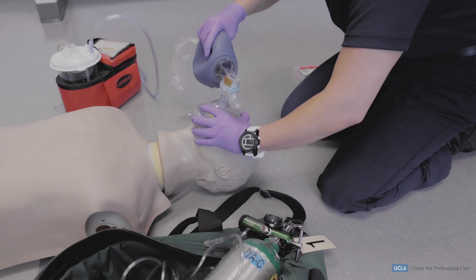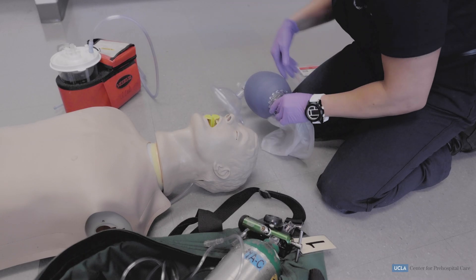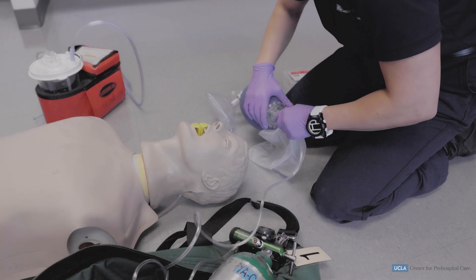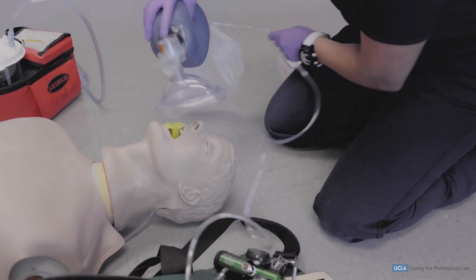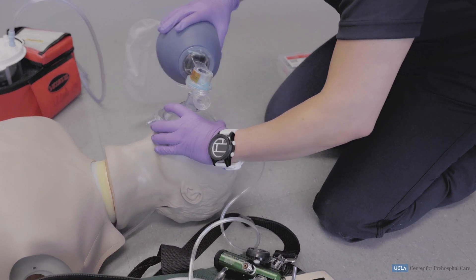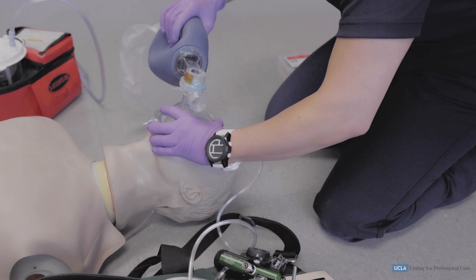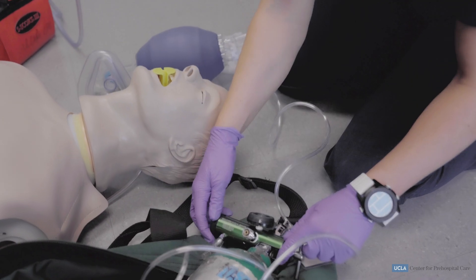She attaches the pre-assembled oxygen cylinder with the regulator. Attach the oxygen tubing to the regulator and turn the dial to 15 liters per minute. Then attach the tubing to the bag valve mask device. Resume ventilation without exceeding 30 seconds.